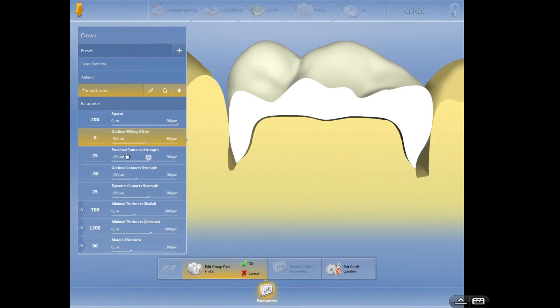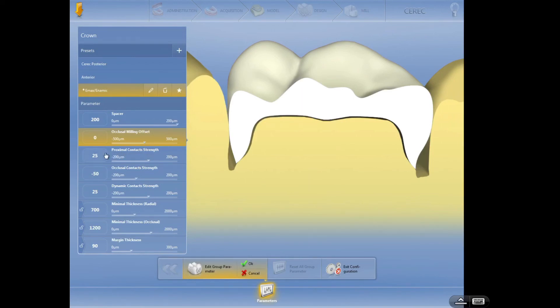The next three — these contacts — are only in the proposal phase. What I mean is once you get a design proposal, that's where these numbers are calculated. If you edit them beyond that, these numbers go out the window — these are only for proposal purposes. I like a little bit of red on an Emax, just a very hint of red or a lot of yellow. Some of the other restorations, depending on the hardness of the material, I can do a little more red. But the way I polish, I find that just a hint of red and a lot of yellow on the Emax restorations works really well. These are usually edited after the fact — we almost always edit these in our design process. So I would leave these alone as well.